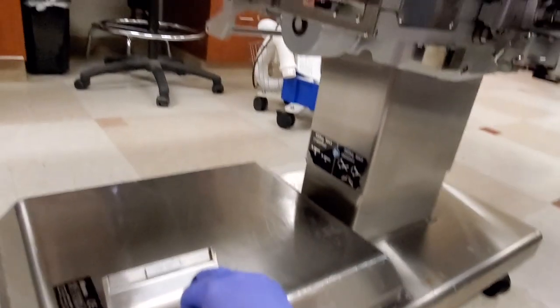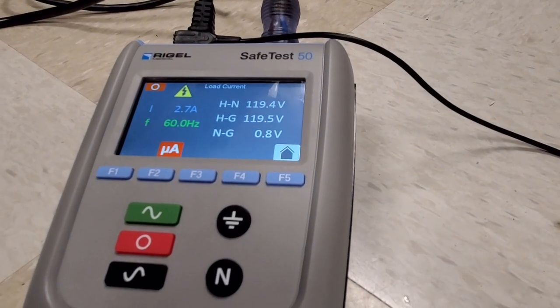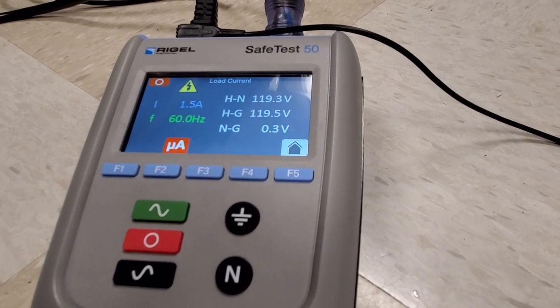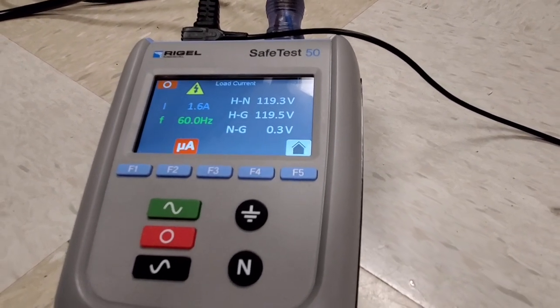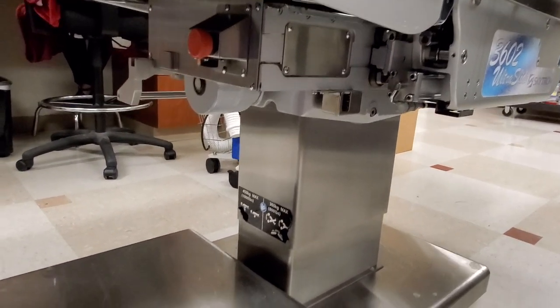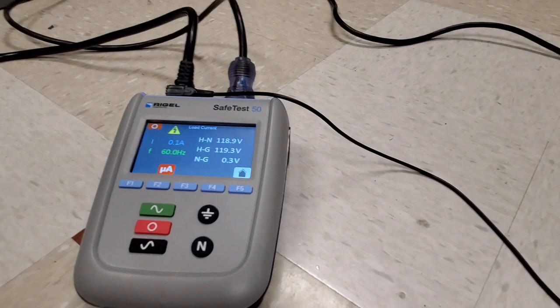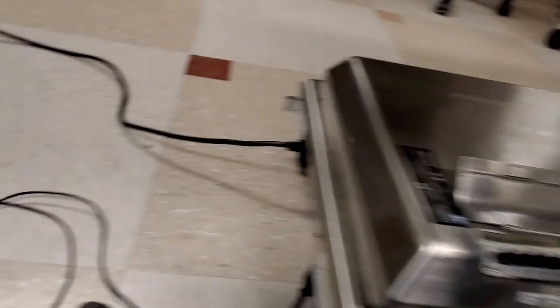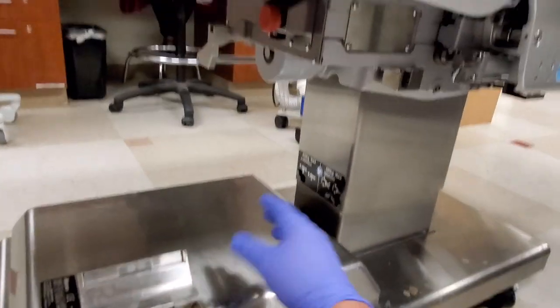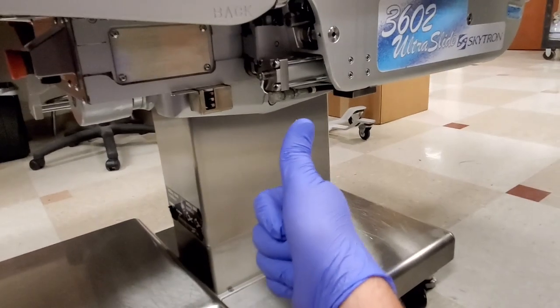What I'm doing is moving the table up and down just to make sure that my equipment current stays within a reasonable range. And there we go guys — it passes the electrical safety. All I gotta do is screw the hatch back down, plug in my remote, finish up the test, and the 3602 is good to go.